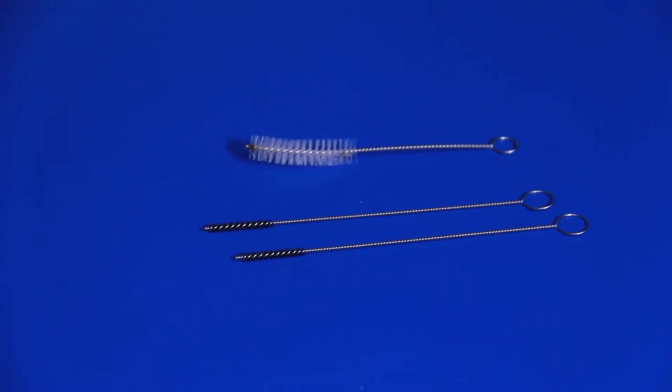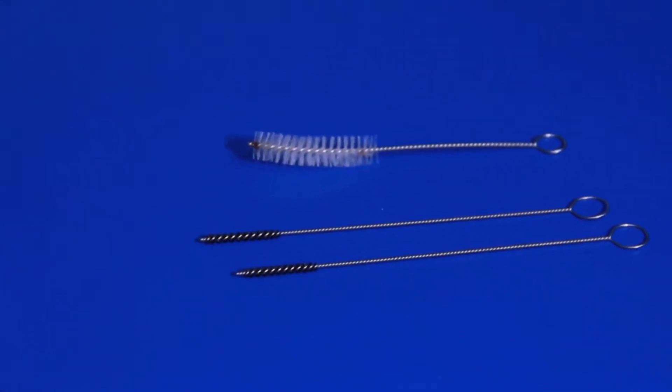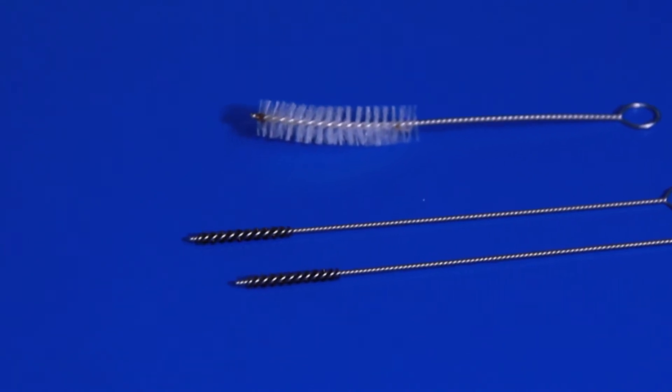Remember, use stiff plastic cleaning brushes. Do not use steel wool or wire brushes.